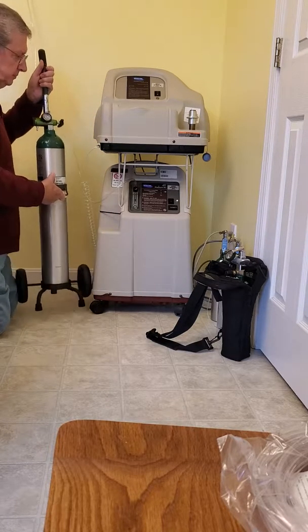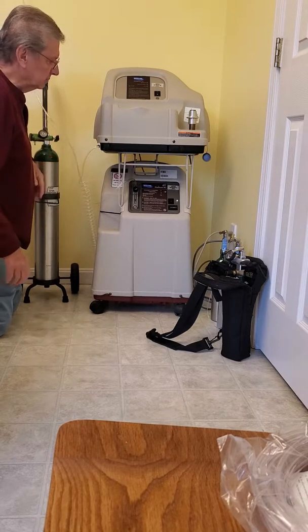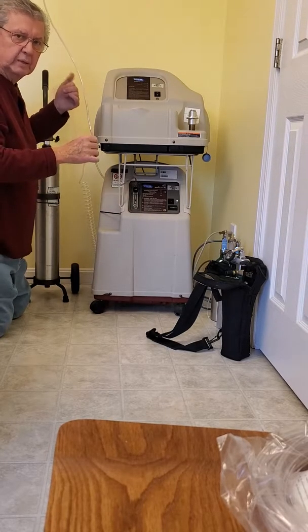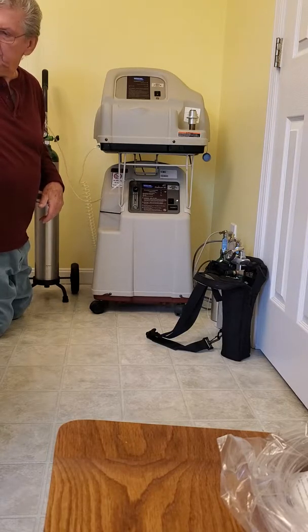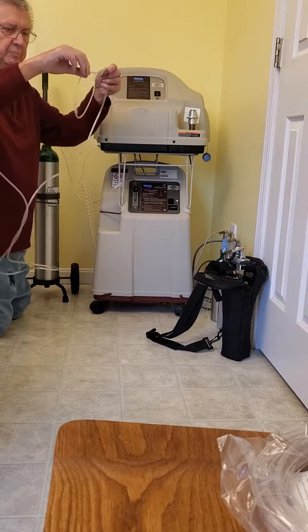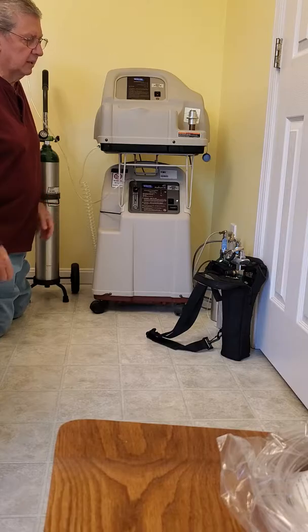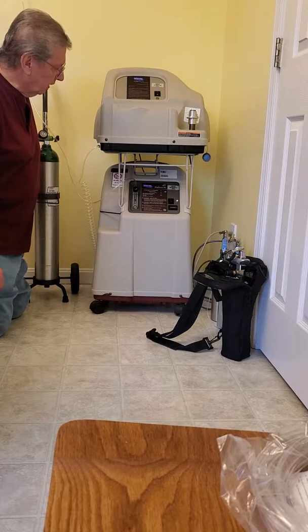Then we have this one here — you would wear it. You hook your oxygen tube to it. We use it in the bedroom and in the living room. There's always additional tubing, and you just put the oxygen on wherever you're sitting or walking through the house. We have enough where it goes throughout the house — the bathrooms, the bedroom, the living room.